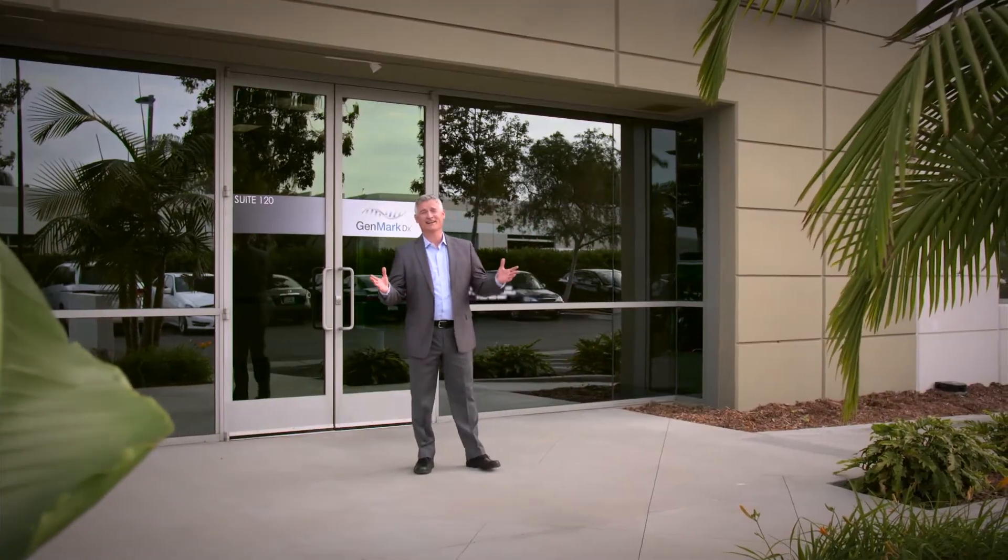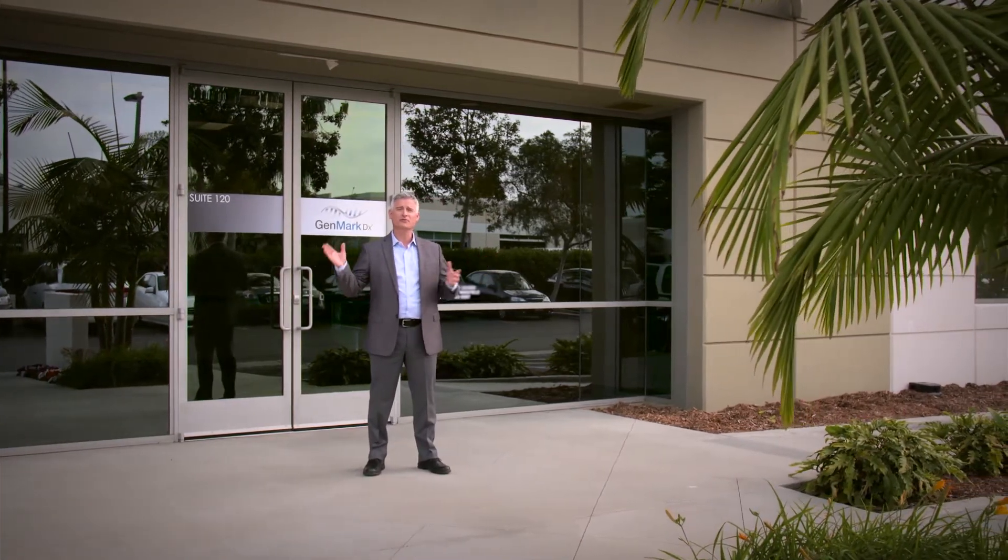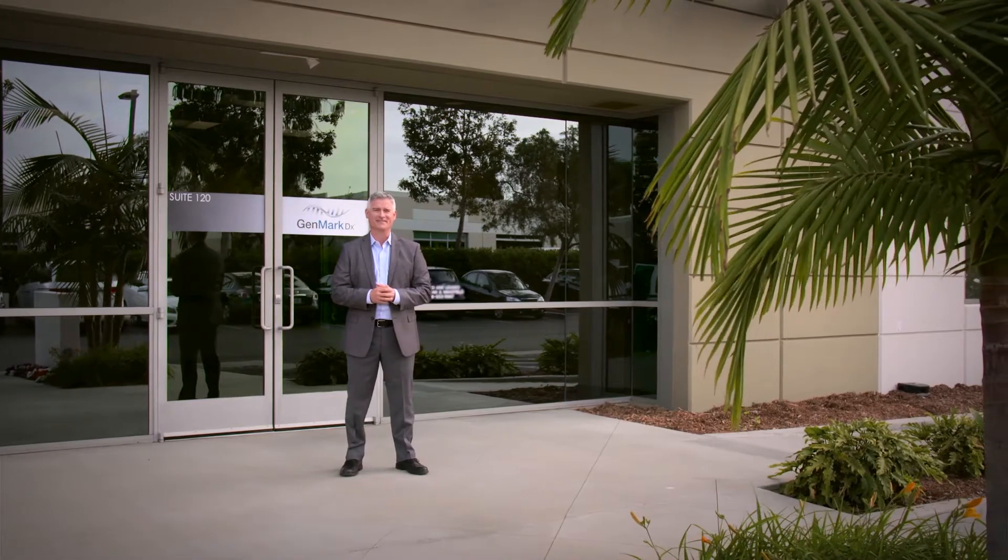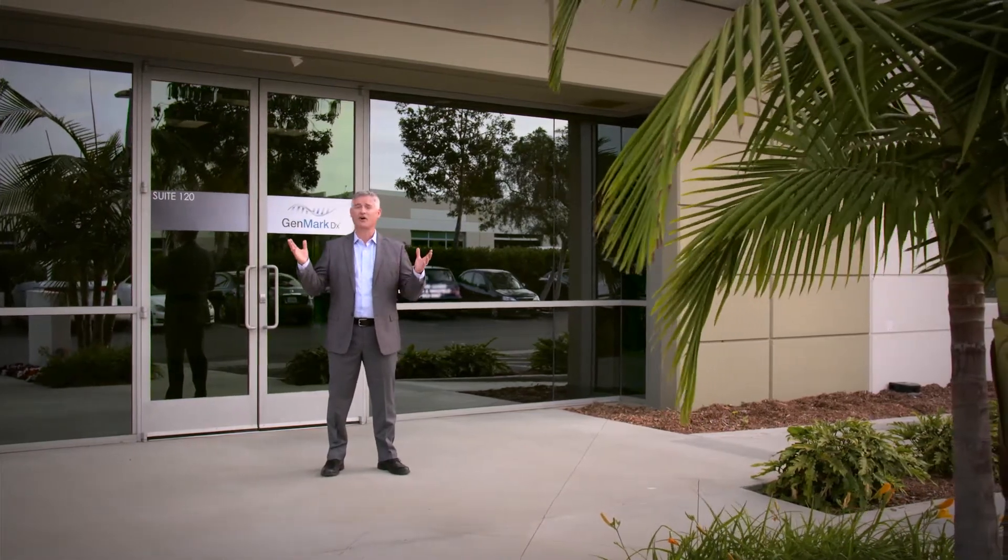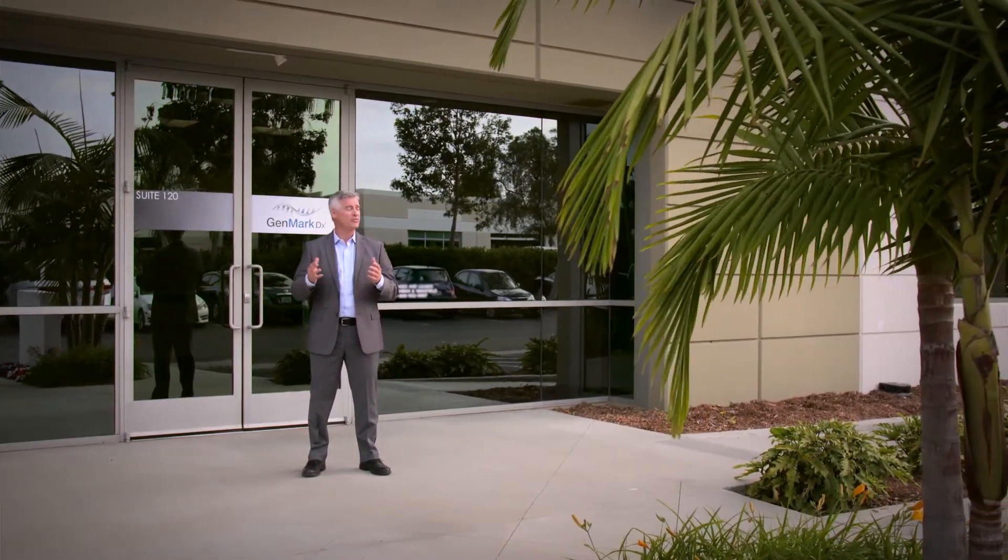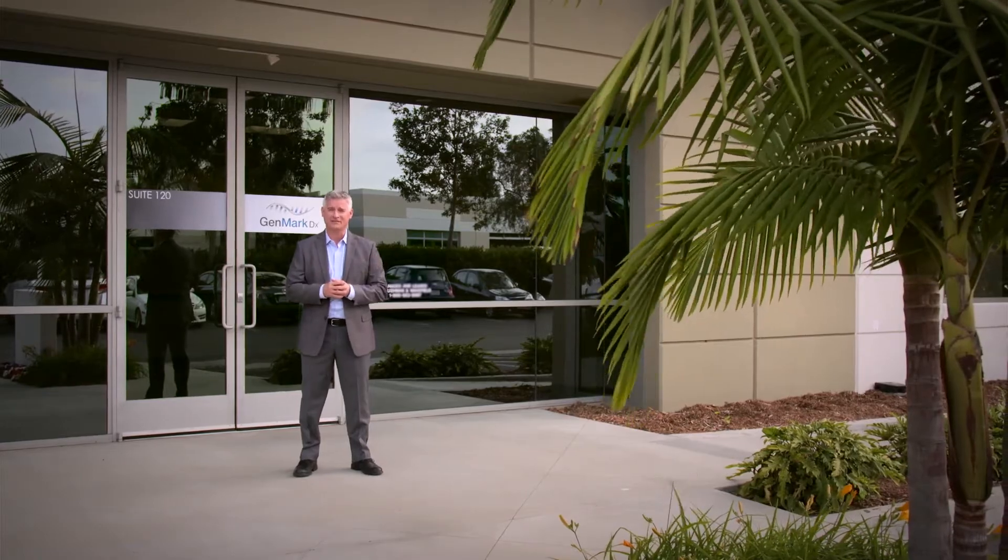Hello and welcome to Genmark Diagnostics. We're excited to have you with us today for a video tour of our new ePlex manufacturing facility. Located here in Carlsbad, California, we're about 35 miles north of downtown San Diego.